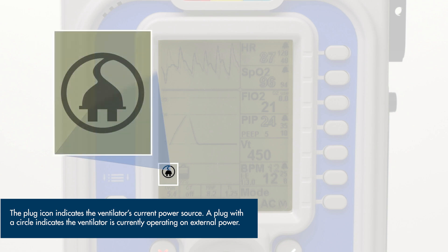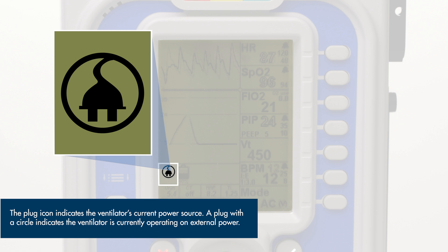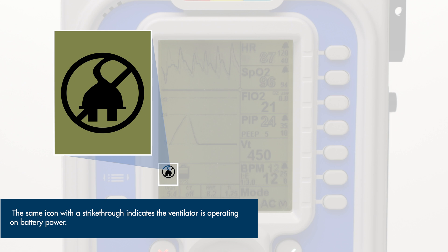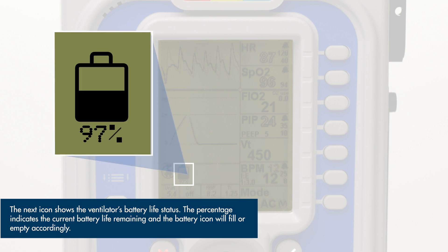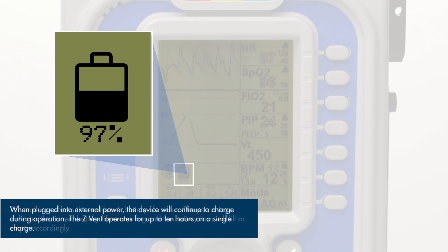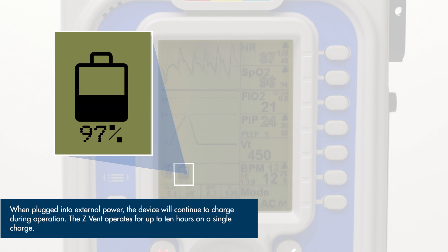The plug icon indicates the ventilator's current power source. A plug with a circle indicates the ventilator is currently operating on external power. The same icon with a strikethrough indicates the ventilator is operating on battery power. The next icon shows the ventilator's battery life status. The percentage indicates the current battery life remaining and the battery icon will fill or empty accordingly. When plugged into external power the device will continue to charge during operation.